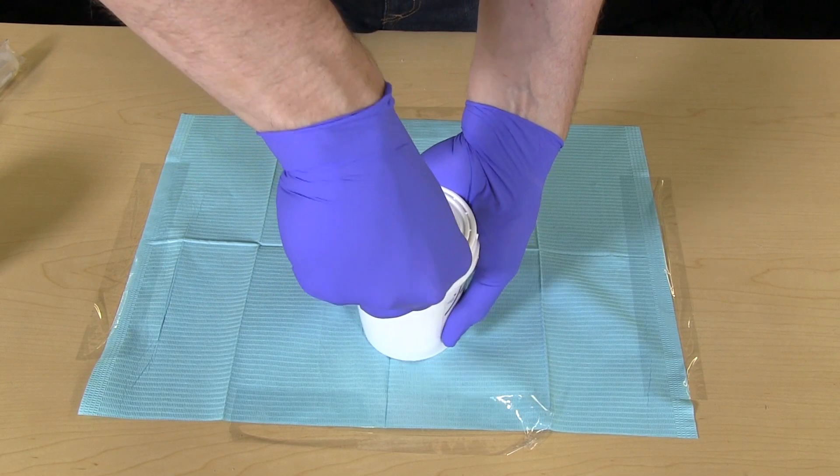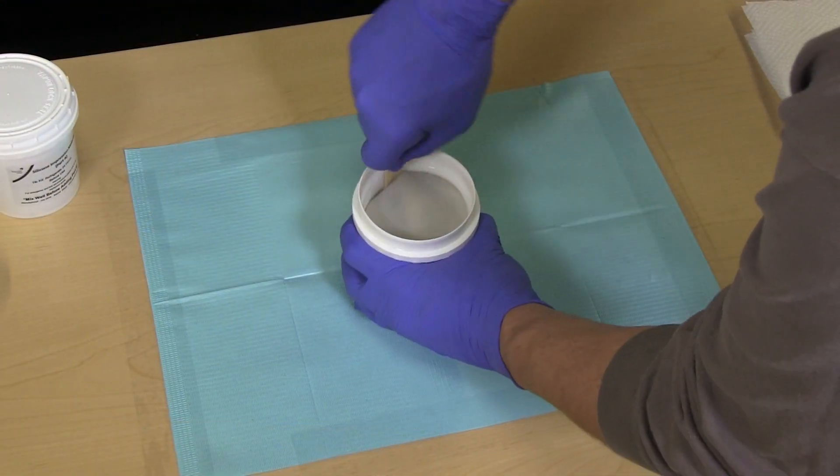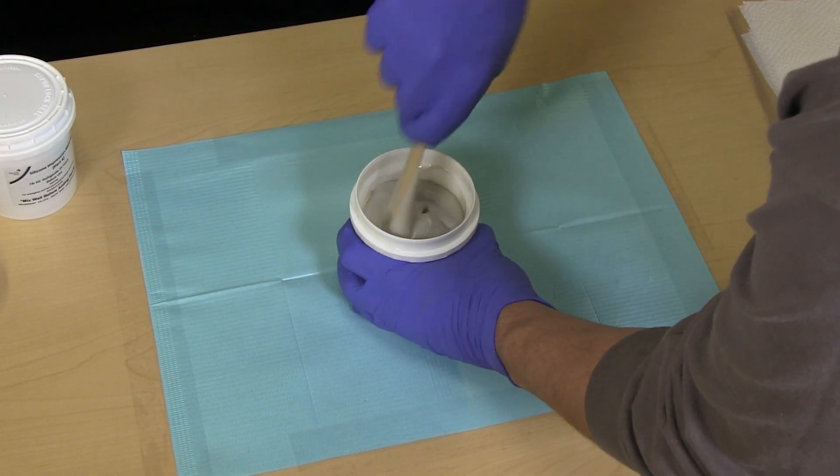Open the impression container and pre-mix the unactivated material. Settling can occur during shipping and may affect the curing process.